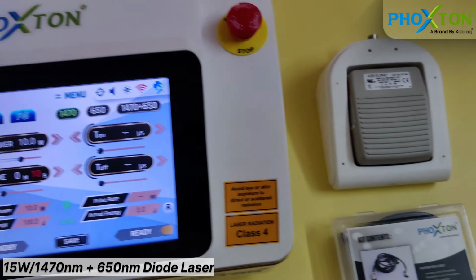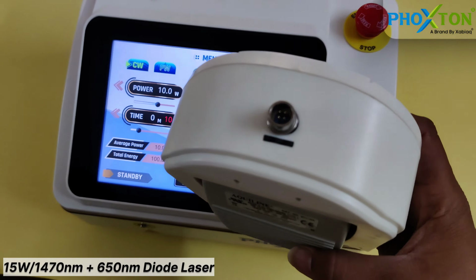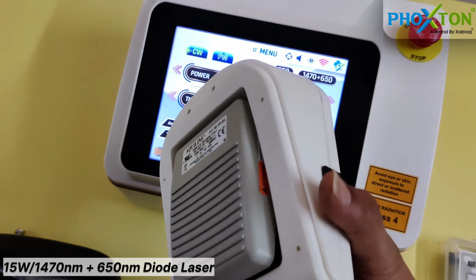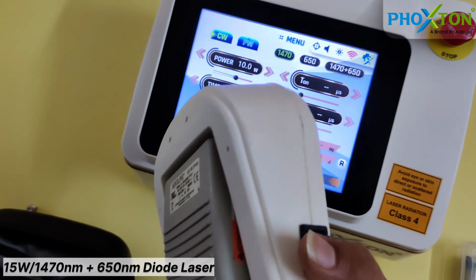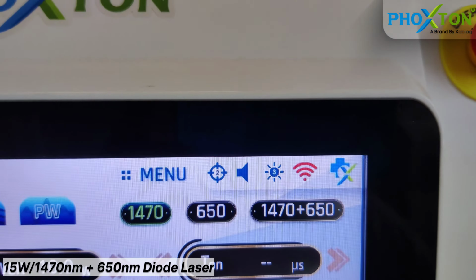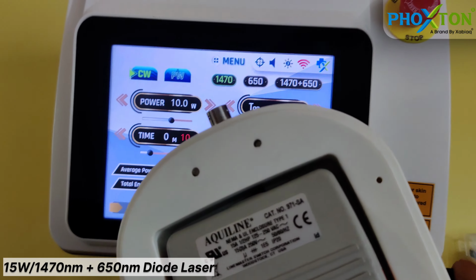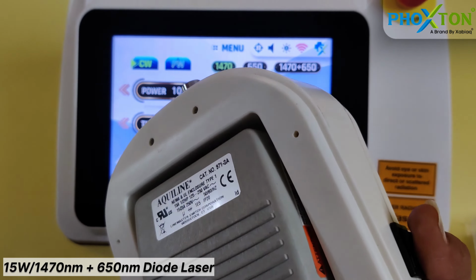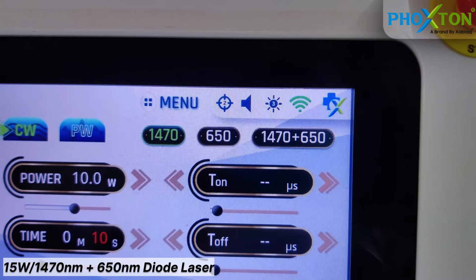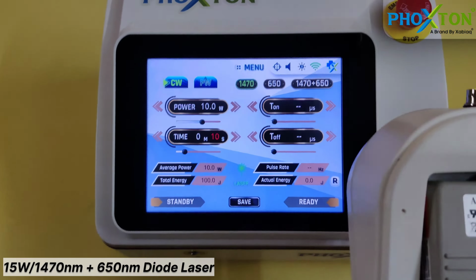Now you can see this is our foot switch. This is a wireless foot switch. You can connect it with a wire also, and you can connect it wirelessly also. Now you can see here is the on and off button. You can see here the light of the foot switch is red. It means the foot switch is not connected. So right now the foot switch is not connected. So whenever I press the on button, the foot switch will be on and this button will turn green after 3 seconds. So our foot switch is connected right now.